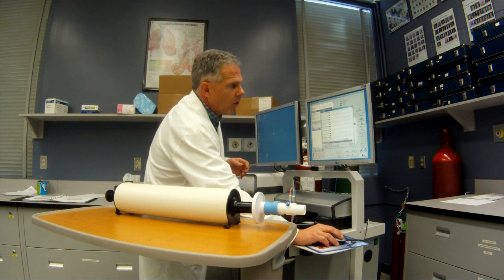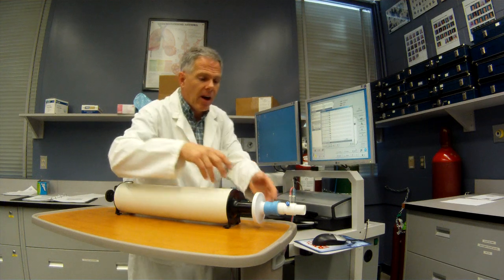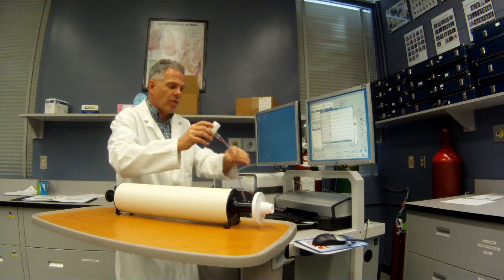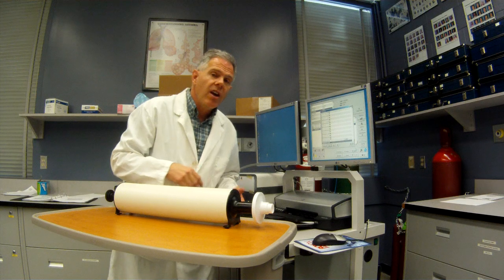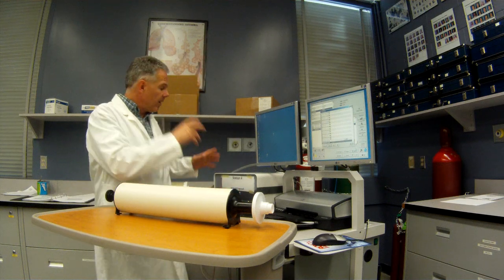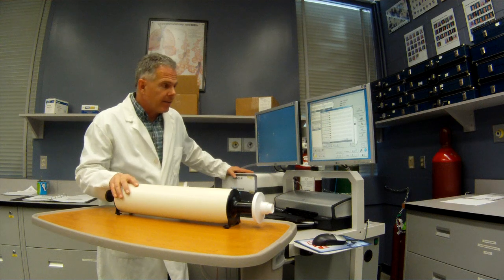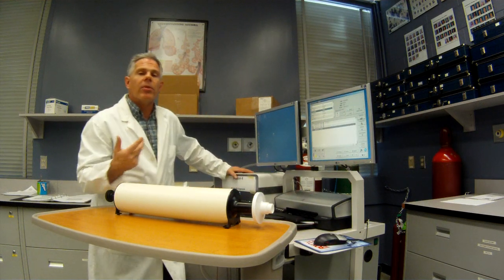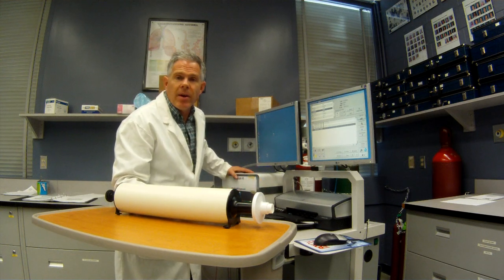Stop that. We can always recall that at a later time. So that wasn't the best cal in the world. I'm not just sure. I'm going to have to check this over a little bit later. But that's the basic introduction of procedures for verifying the performance of our Pneumotac with the MediSoft ErgoCard. Once I've finished that, I can close this screen and start doing my pulmonary function testing entering my patient data. Thank you very much. I'm Alan Frost.